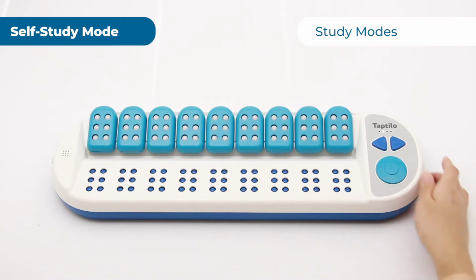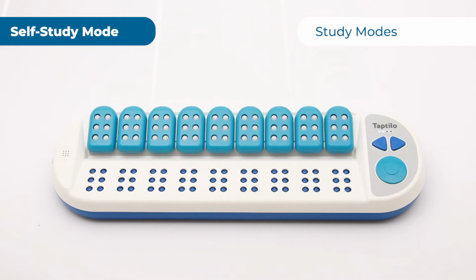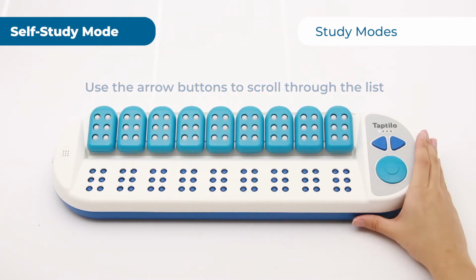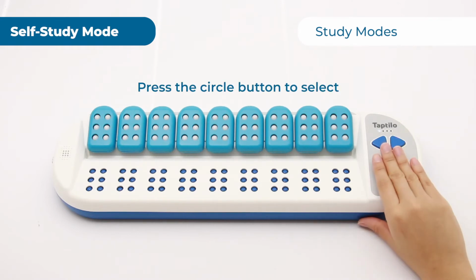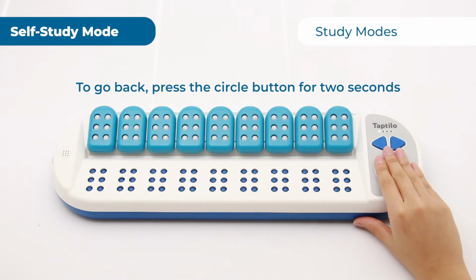When you turn the device on, you will hear the audio instructions that tell you to press the circle button to start. For self-study mode, press the circle button. Then you will hear instructions on how to use the buttons to choose an activity. Use the arrow buttons to scroll through the list and press the circle button to select. To go back to the previous list, press the circle button for 2 seconds.